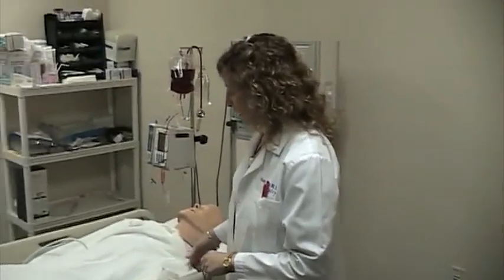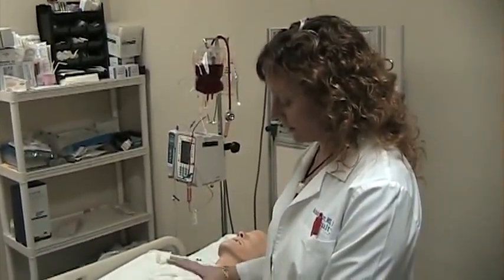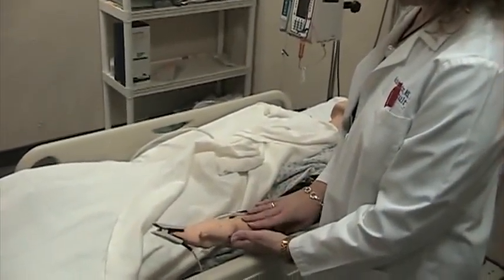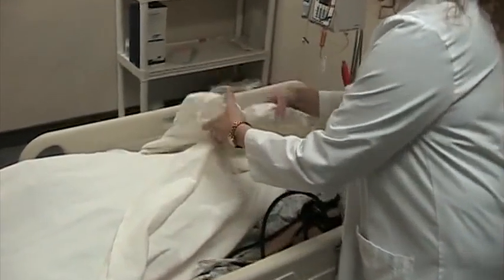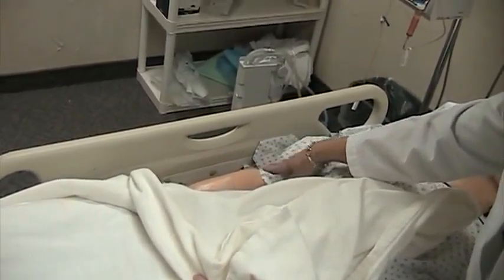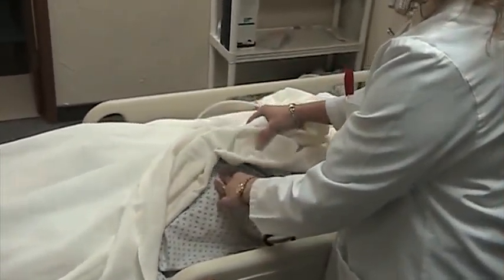So let's say we need to finish our assessment on SimMan. We wanted to show you a few things that go on here. Obviously he can breathe. He has all the normal body sounds, heart, tummy, anything that you would need. The only radial pulse that he has is in his left arm, and you do need to push usually to get it started, and then you can count it and feel it just like you would. His right arm is only accessible for IVs. There is no pulse on the right arm. So those of you needing to use IVs can use his right arm. He does have femoral pulses you can feel, however he does not have any pedal pulses.